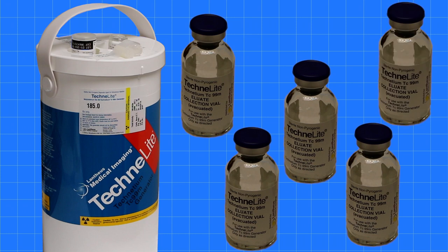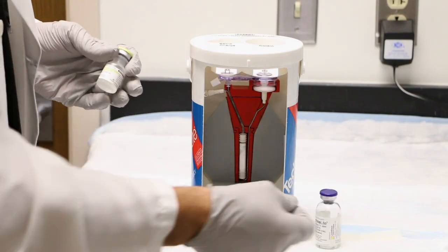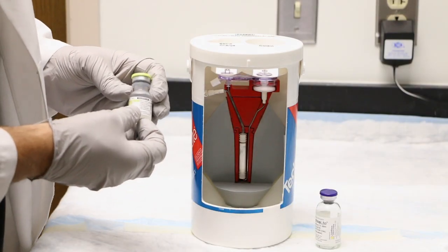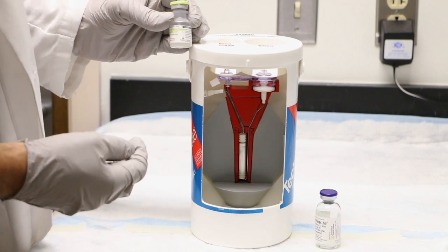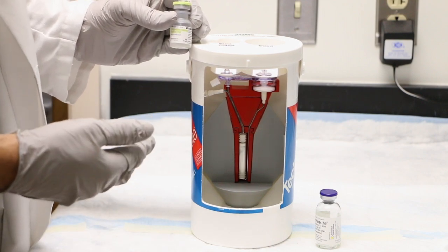A significant number of daughters can be produced from the parent during a process called elution. For our radionuclide generator, this device works by simple chemical separation.